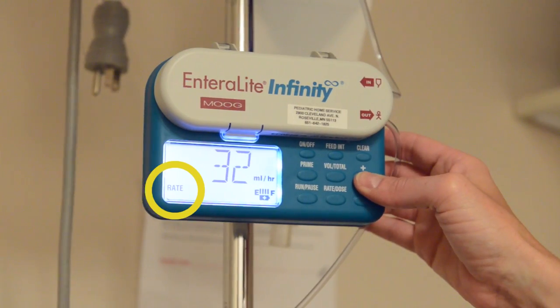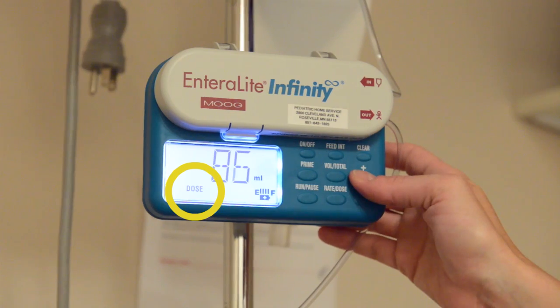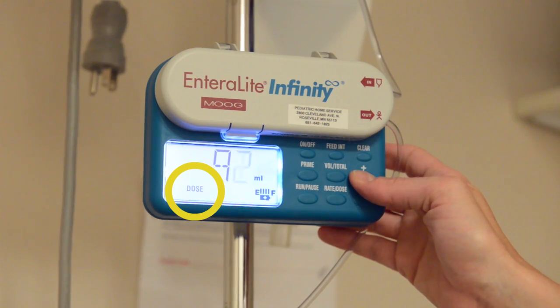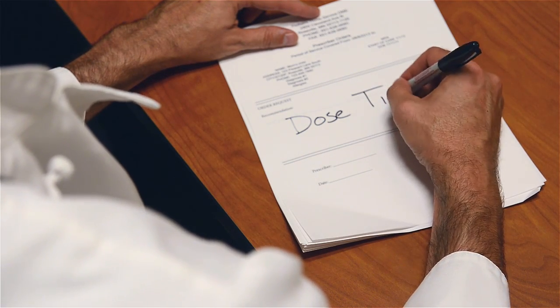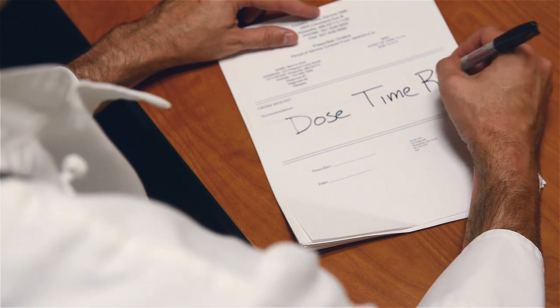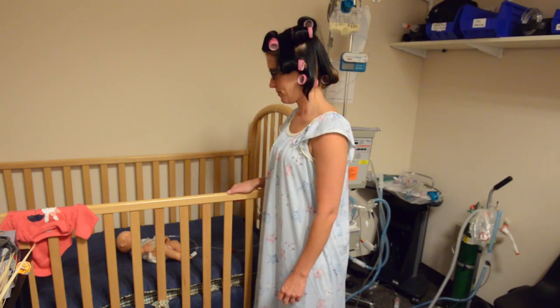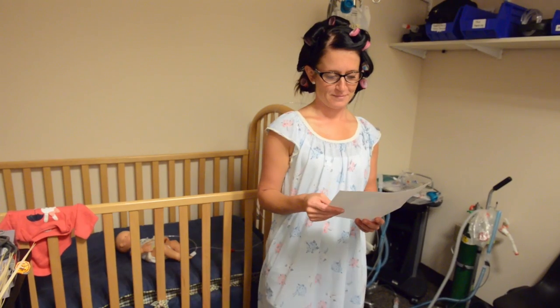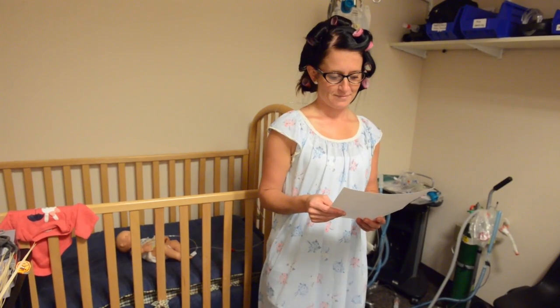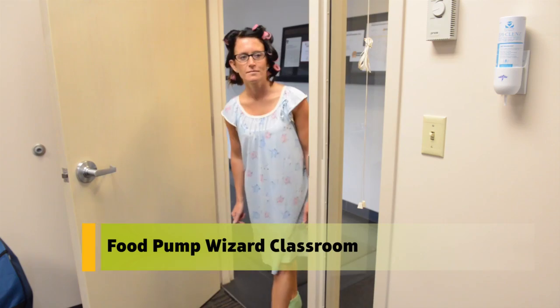Make sure you enter the rate in the display window on the food pump for rate, and dose in the display window on the food pump for dose. We will now go through some common ways doctors give feeding instructions and work out dose, time, and rate for each instruction. The instructions from your child's doctor might not match our examples, but understanding the examples can help you as you work out the dose, time, and rate for the food pump.